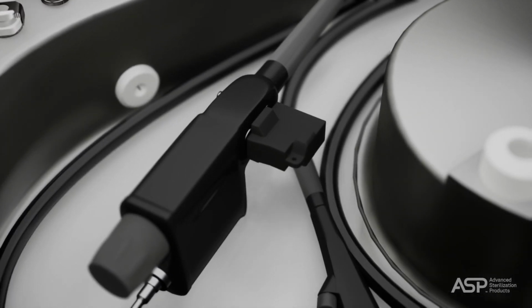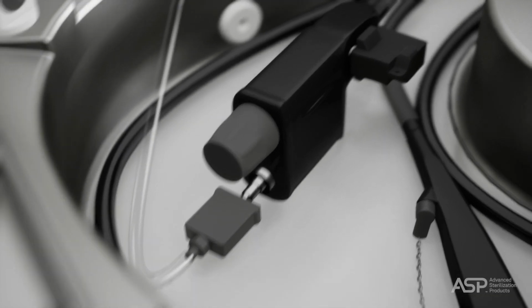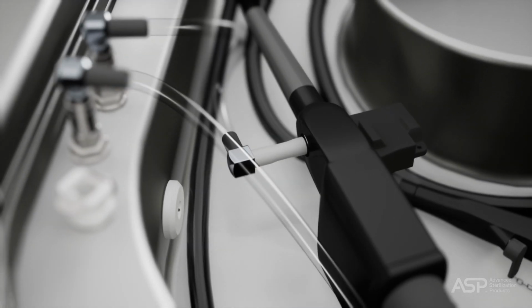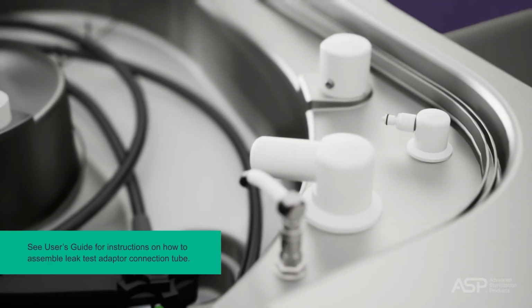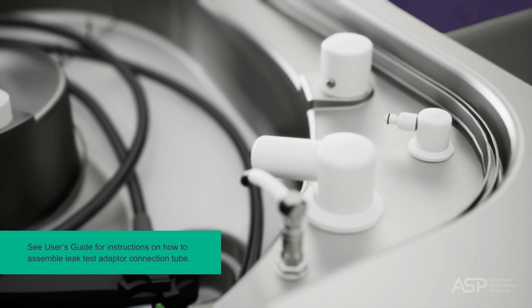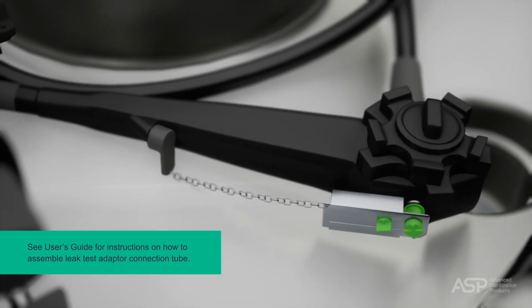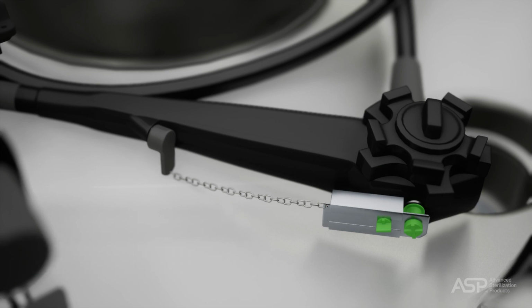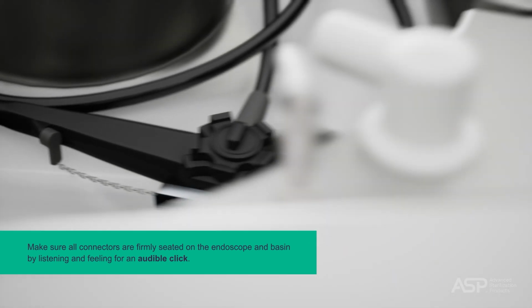Then, using the connection diagrams as a reference, attach the connection tubes to the endoscope and AER basin. All 4 channel ports on the basin must have a tube connected. In addition to channel connections specified in the connection diagrams, you can also attach the leak test connection tube to the endoscope and ASP AEROFLEX AER leak test port to keep endoscope pressurized throughout the reprocessing cycle. Make sure all connectors are firmly seated on the endoscope and basin by listening and feeling for an audible click.